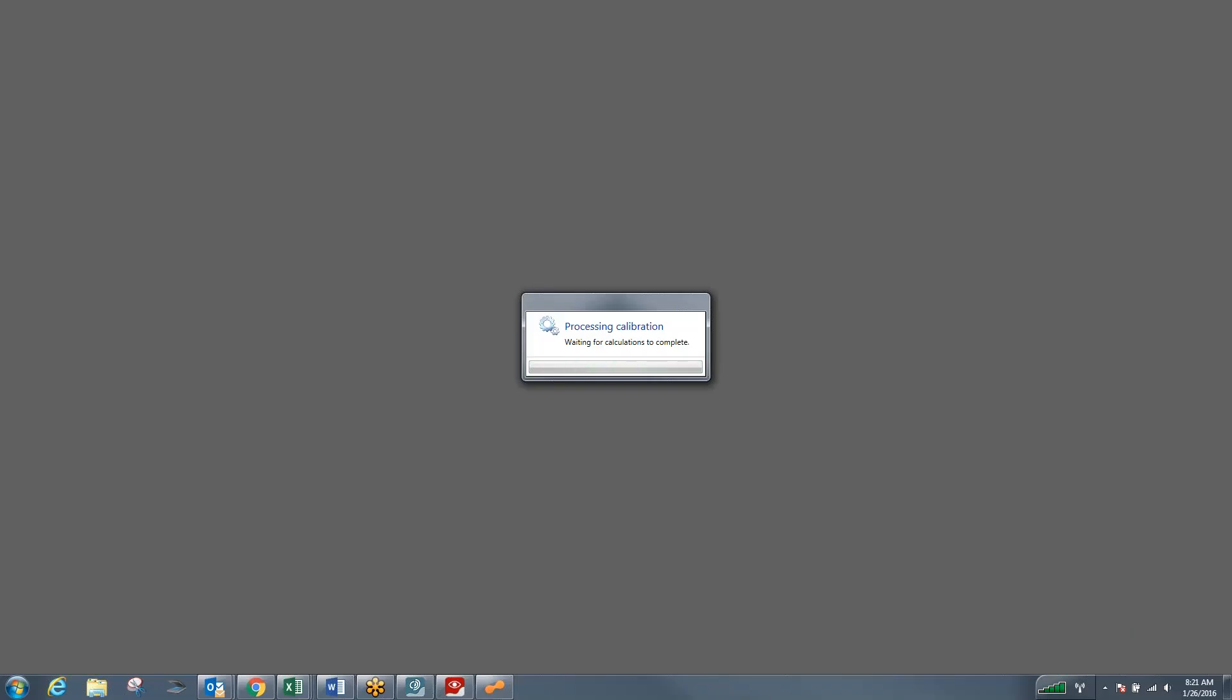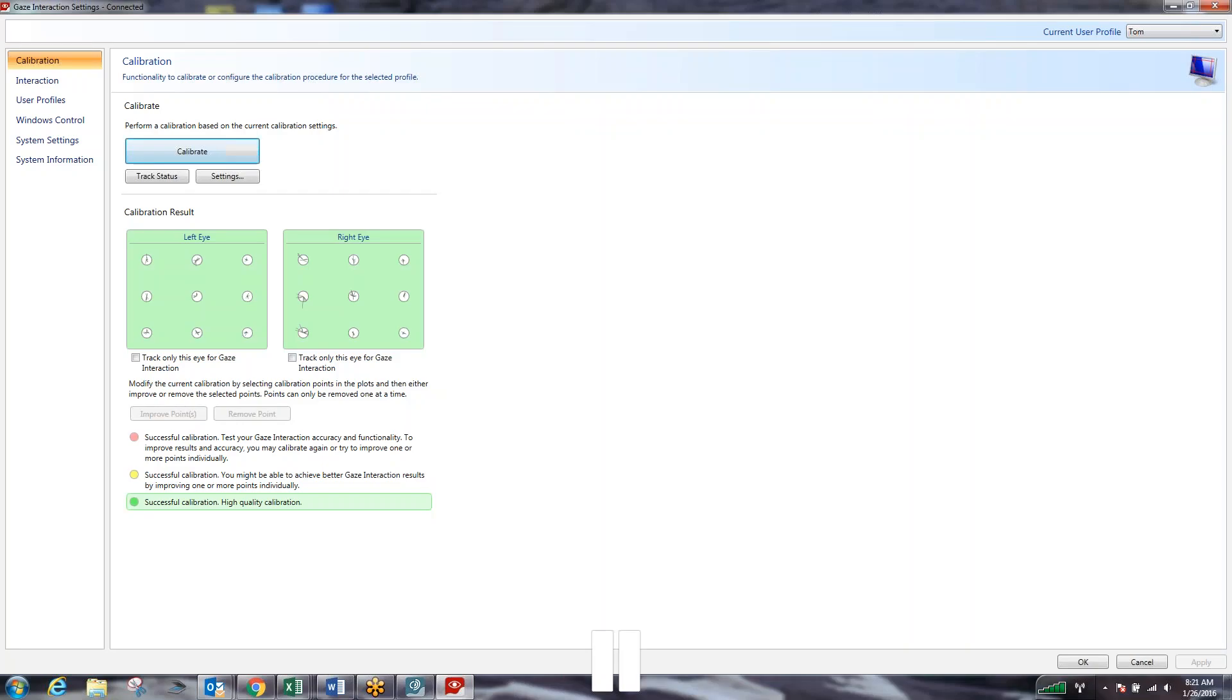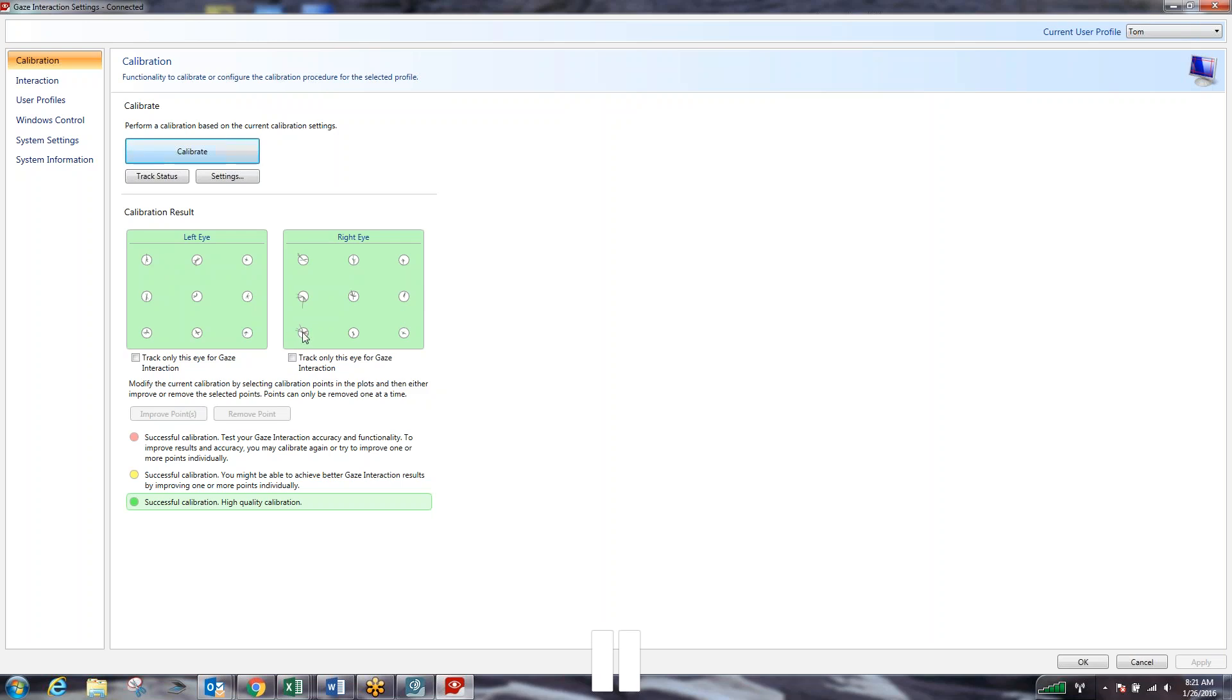Okay, so now that it's calibrated my eyes to the machine, what it's doing is it's processing the calibration to tell me what kind of feedback it picked up. Did it pick up my eyes in all nine locations? Do we have any points that we're going to struggle on? Right now as you can see the background to both eyes is green and what that tells you at the bottom is that this is a successful calibration and it's fairly high quality. Our goal with the calibration is to get these lines which represent the movement of our eyes as close to the inside of these white circles as possible. I have some locations of the screen that are a little bit better for me than other locations.